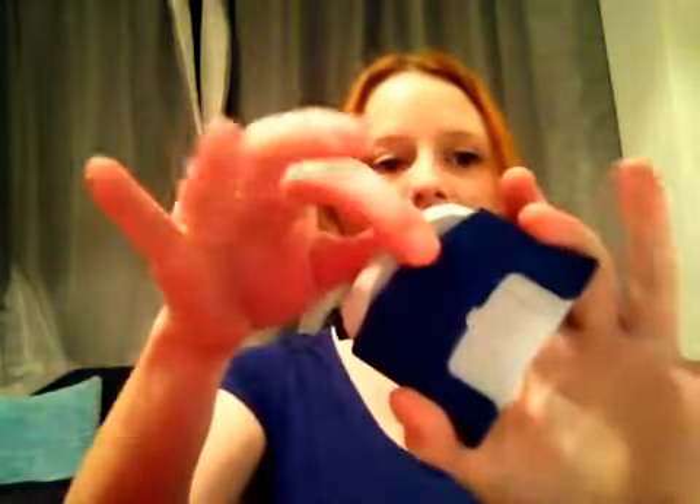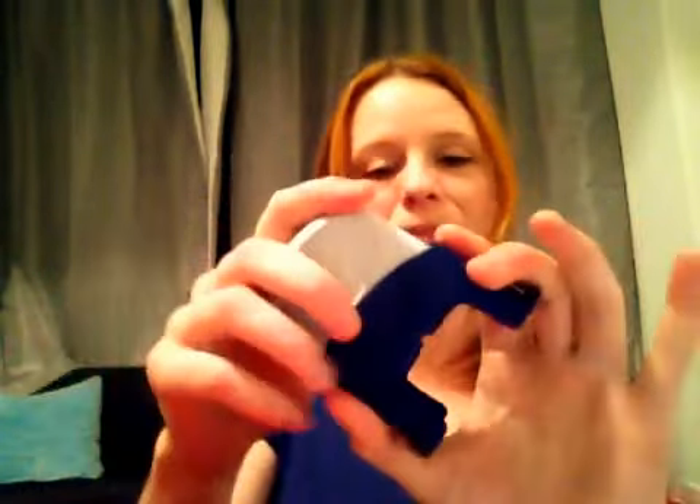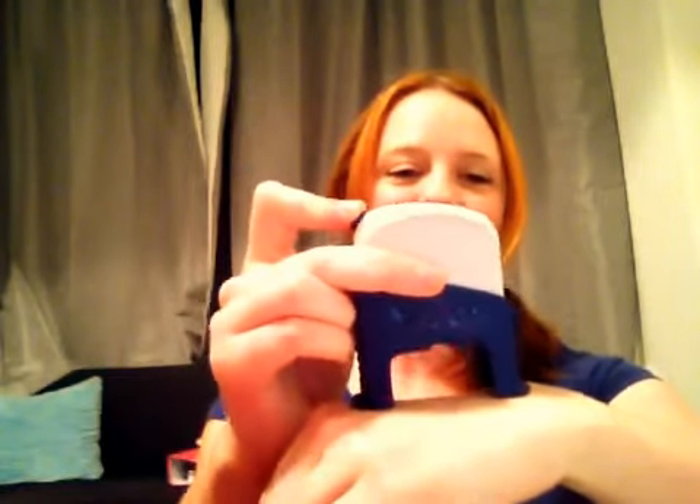I could insert it myself but I'm not brilliant with needles and pushing a needle into my stomach. I've been doing it for about 10-11 years, so it's quite nice to have a break from actually having to inject, especially when you don't like seeing needles going into skin. So basically all you do is you put the needle in inside, pull it back, take off the safety, put it on your stomach, your legs, your arm, or your bum - and you push the button and it shoots it into your skin.